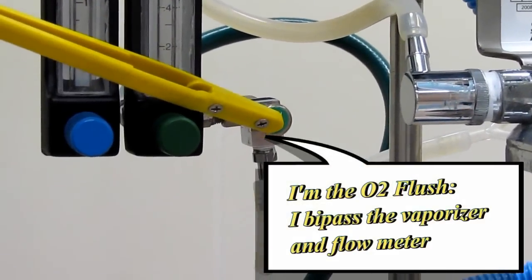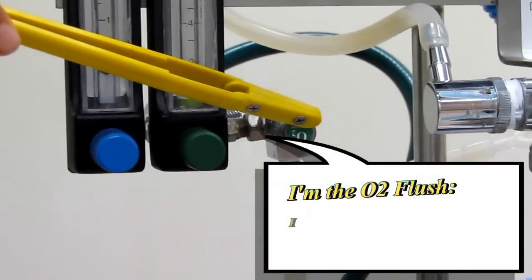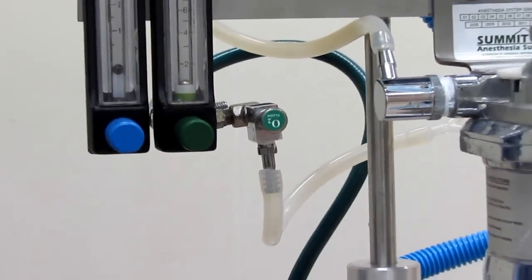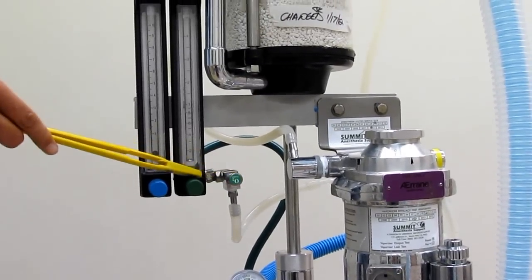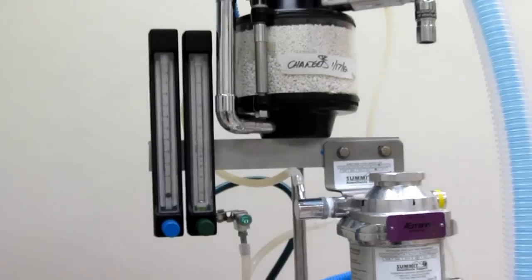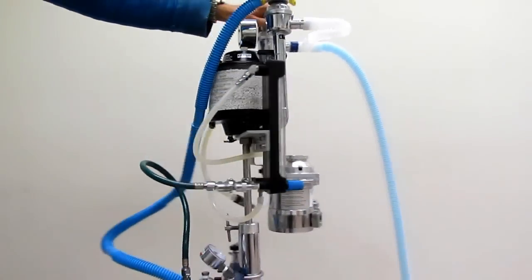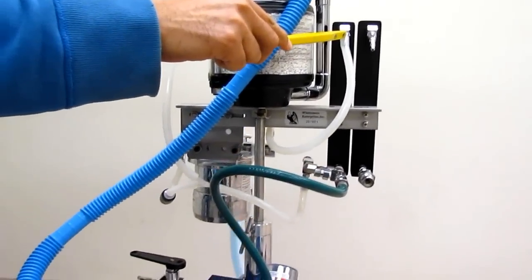This button, this green button, is called the O2 flush valve, and pushing this will send gas straight to the breathing circuit, bypassing the vaporizer and the flow meter. It is important that the O2 flush valve never be pressed if the machine is connected to a non-rebreathing circuit. But let's avoid that for right now. Let's go through the flow meter.